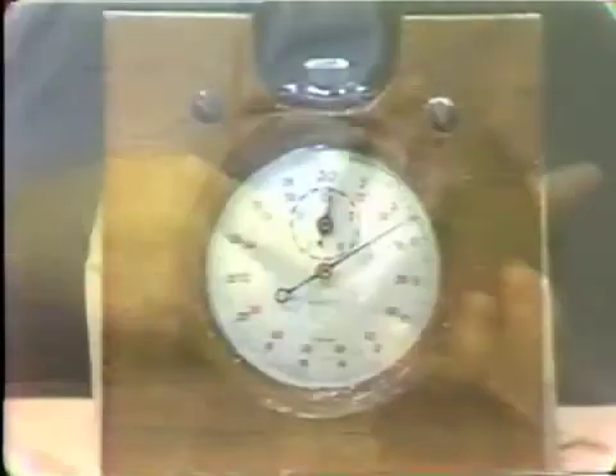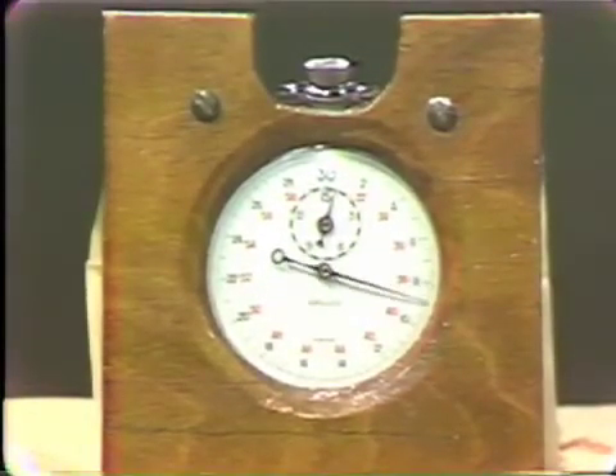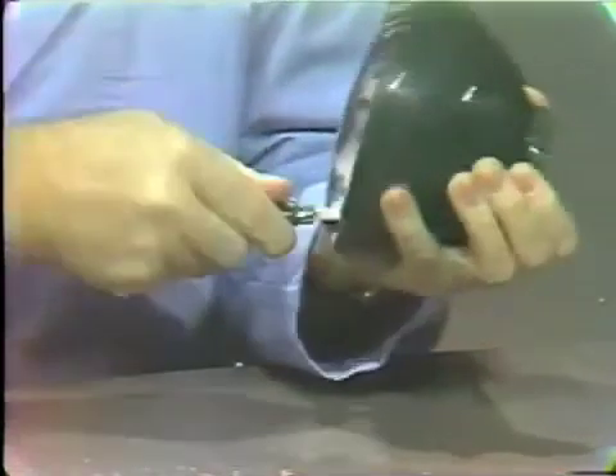Again, it's wise to collect the material up and spread it out again over the surface of the mixing bowl. We're now beginning to approach the 45-second mark. We'll discontinue mixing and simply load the tray with this material.